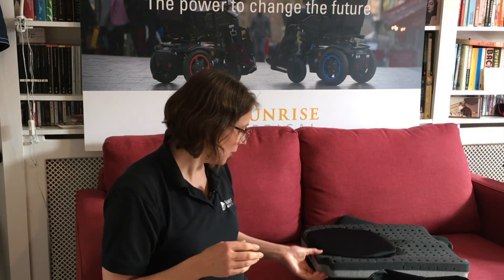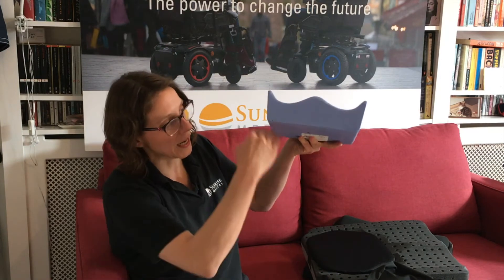In the case of all of these cushions, it's important that you look and see if your cushion is becoming compressed over time. A good time to check that is when the covers are off anyway, if you're popping them in the wash. Because foam works like a system of tiny little springs, over time it doesn't fully rebound to the original position. So if your cushion is looking flattened, noticeably bowed, if it's feeling uncomfortable — particularly if it's feeling hard — those are all signs that it's getting towards time for replacement.